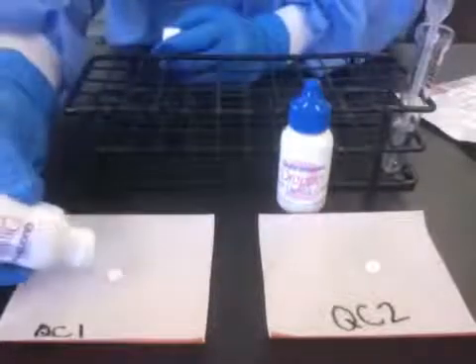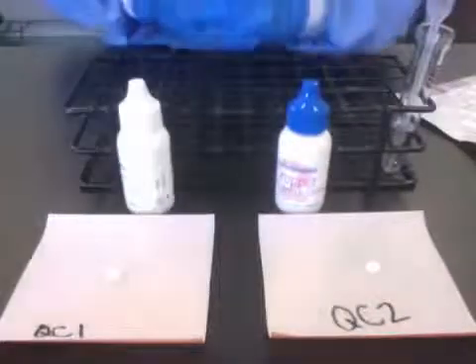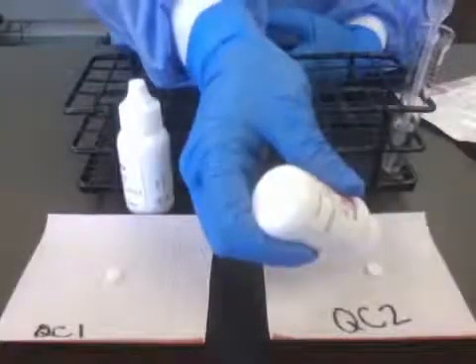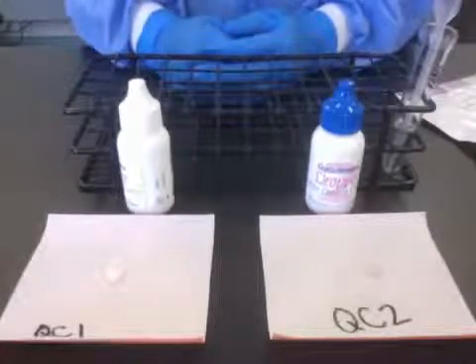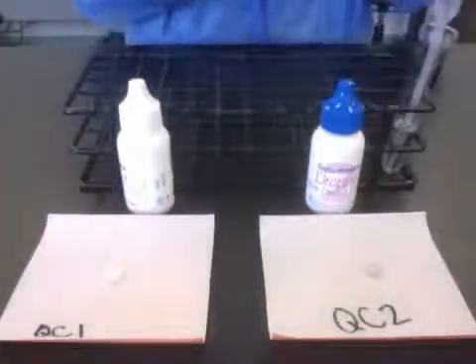Just add one drop — I'm adding one drop of my QC1 to the top of the tablet, making sure not to touch the tablet with the nozzle of the QC1. Then I'm going to add my QC2. Now we're going to wait 30 seconds for the results. I follow the package insert exactly and compare the color on the tablet after 30 seconds. A negative result will be somewhat tan colored and a positive result will have a degree of purple color, and I just compare the results here.